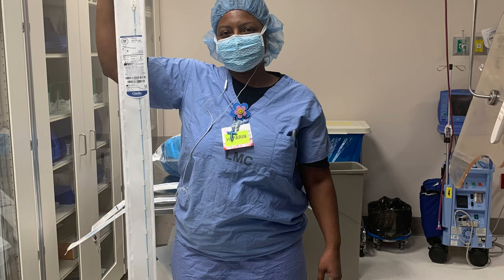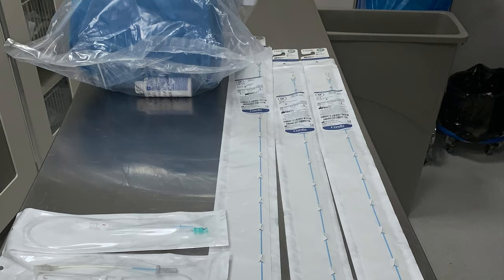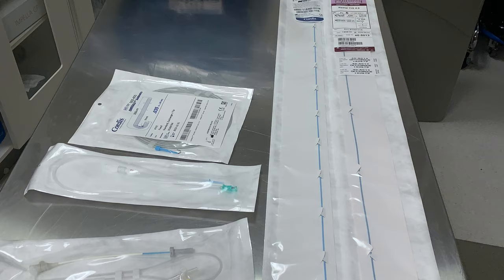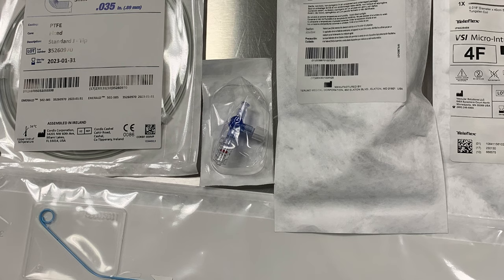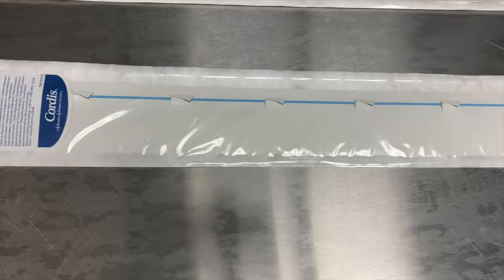As you can see in this picture, I'm holding the catheters. These are the actual catheters used to engage the arteries to allow the physicians to take x-rays to determine whether or not there is a narrowing in the artery that would require any kind of an intervention. The most commonly used access site is through the femoral artery; the second most common is the radial artery.